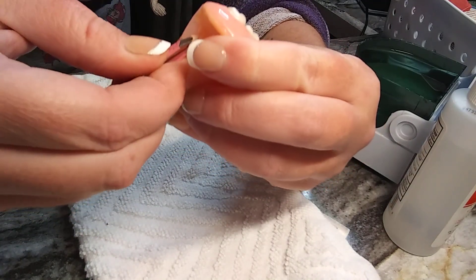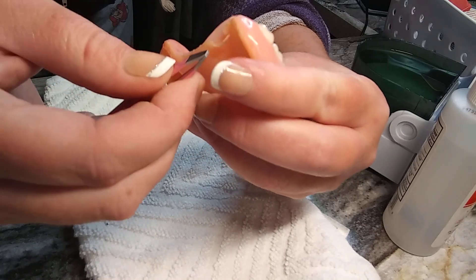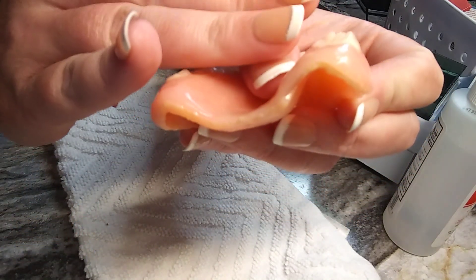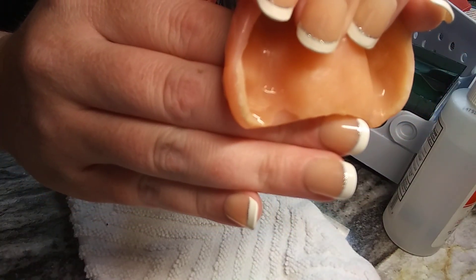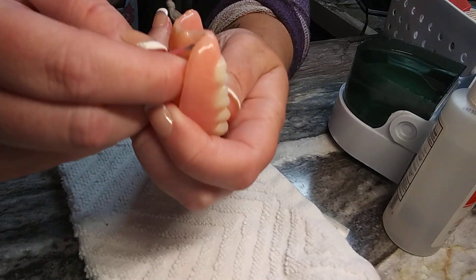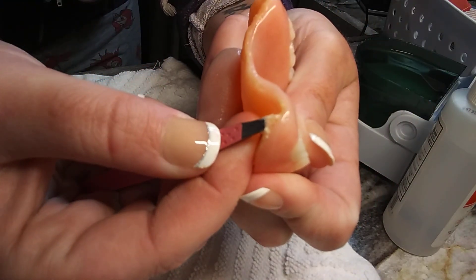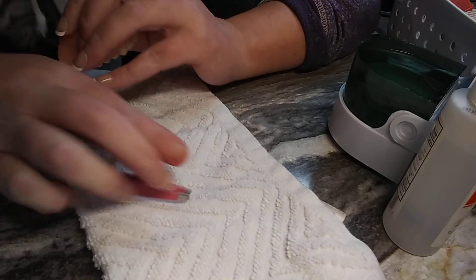This is going to take a hot minute. When the edges get all crappy like this and it's been in there for a long time — when you do your reline right it's in there for months — you want to be careful not to break your denture. See how I got some of that out? It lifts right out, and when you soak it in hot water it does come out. Oh, that's a big chunk coming out — see how I'm lifting it up and pulling it?